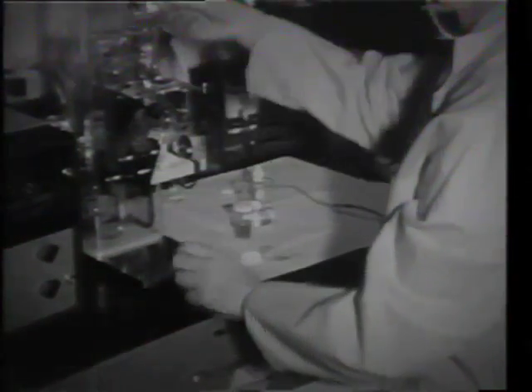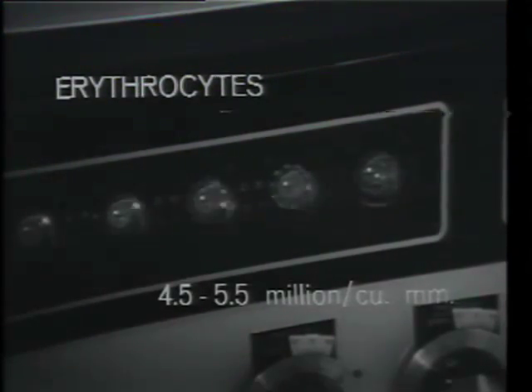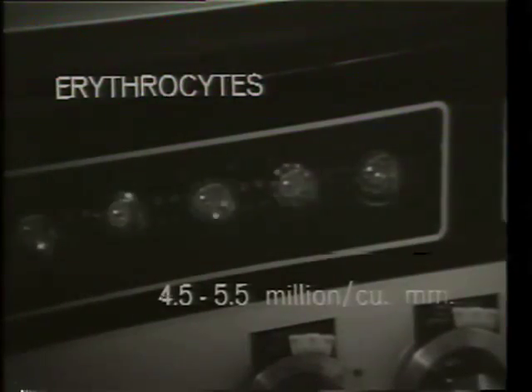Now she is introducing the specimen into the system. There is an external source of vacuum which affects a column of mercury. This, in turn, draws in an exact quantity of the material of the suspension. Working on a switching device, as the mercury passes two switches, the machine is turned on and off, counting the cells within a given volume.